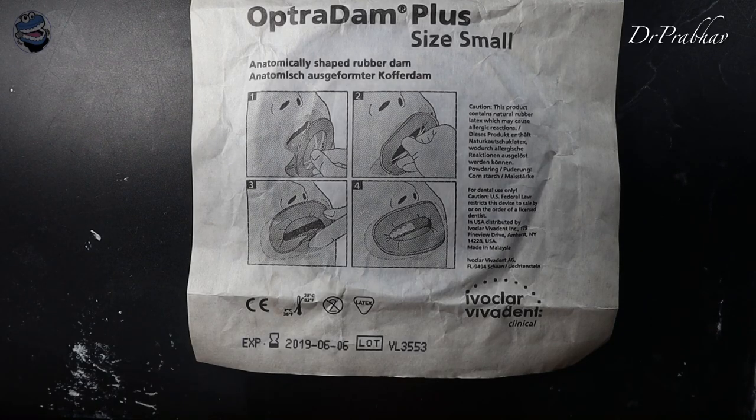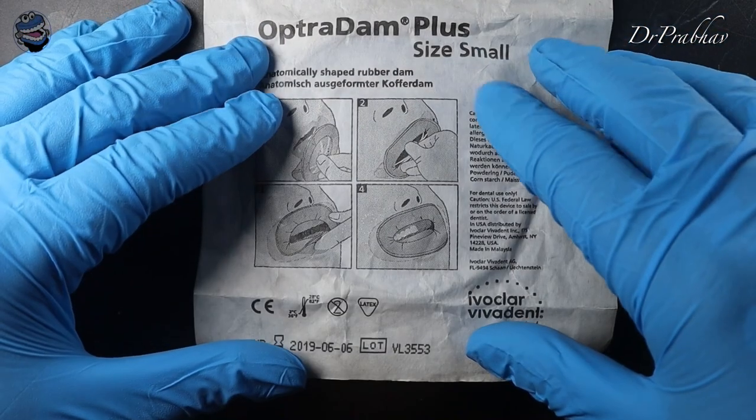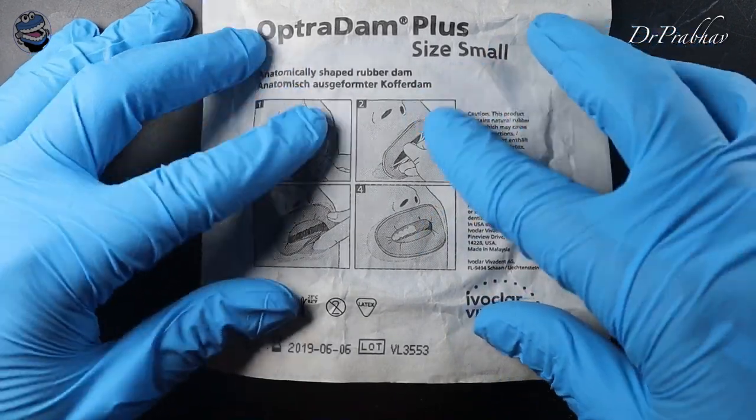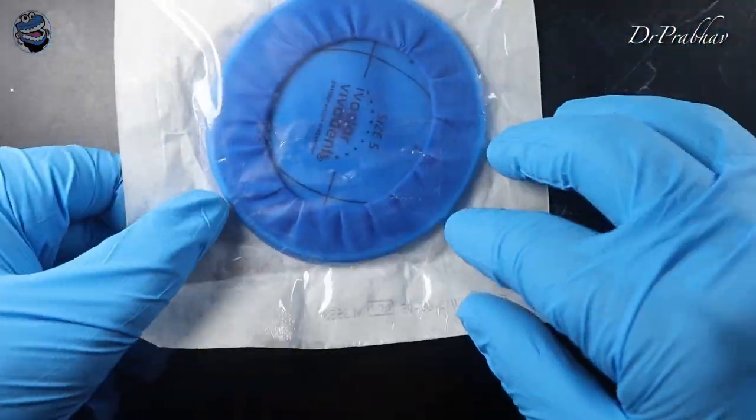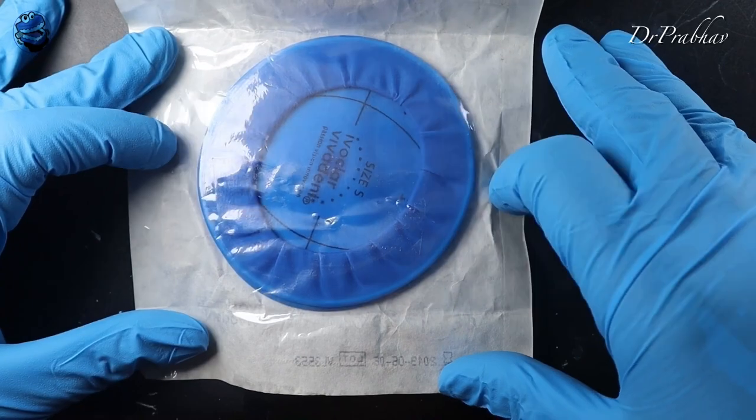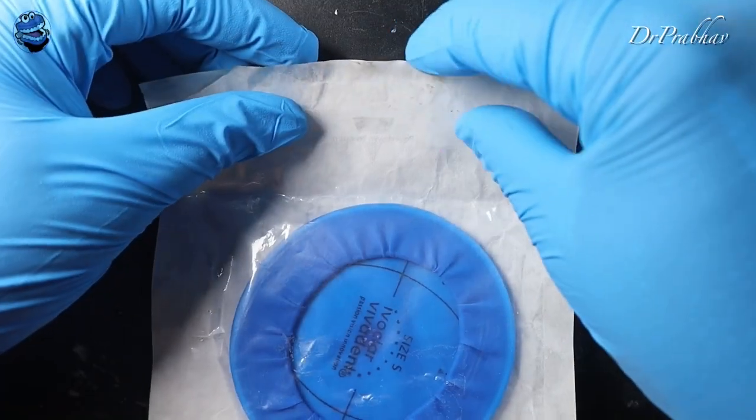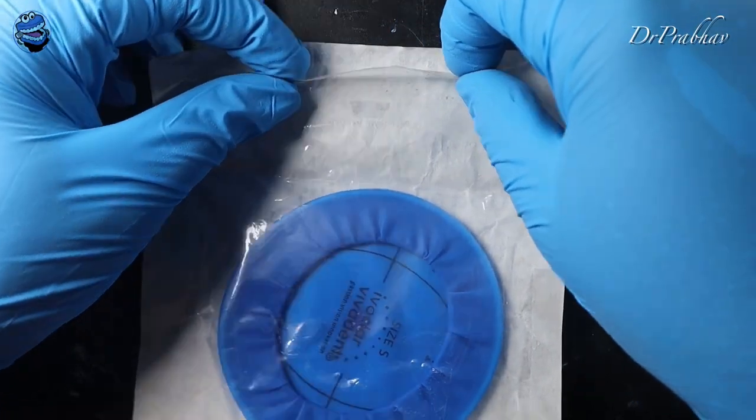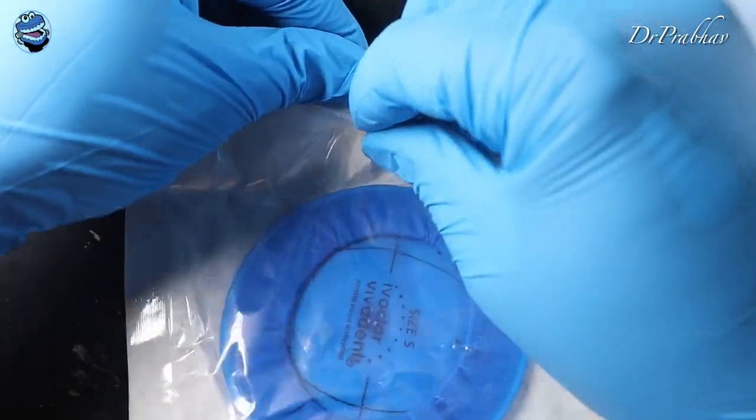Hi friends, today we have a very notorious patient called Dummy. This patient had a lot of saliva in his mouth and he was very happy that I was unable to do any procedure because of the saliva. So what I did was I purchased this thing called OptraDam. I thought that this would work fine with him and he liked the color too.